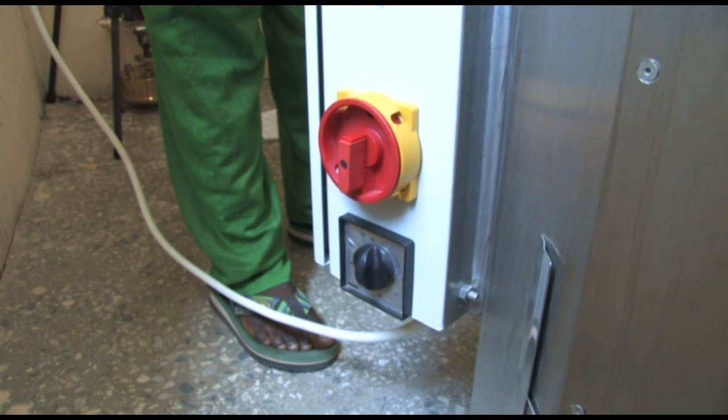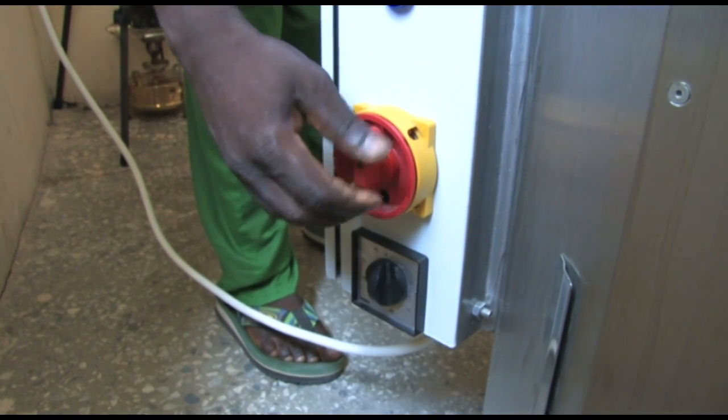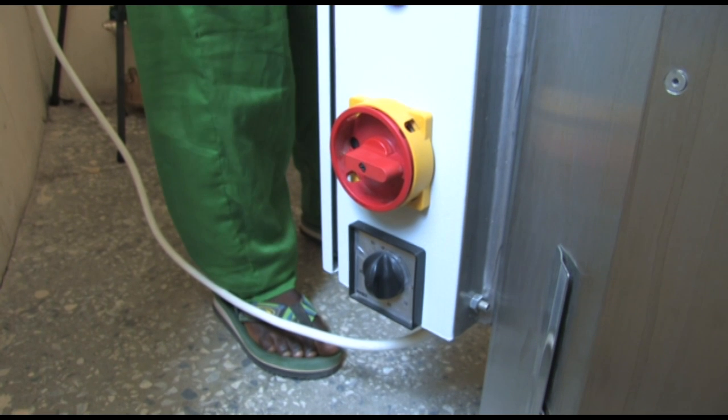Switch on the heating to maximum power, position 3. While the water is heating, you can start loading the chamber.